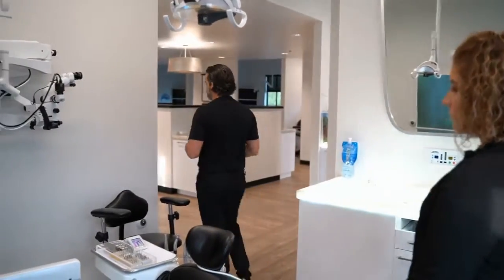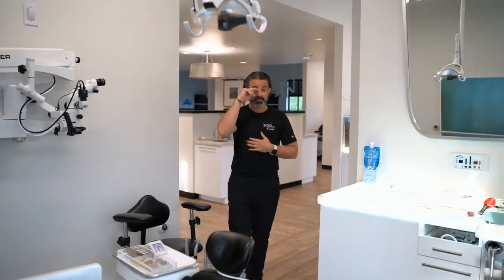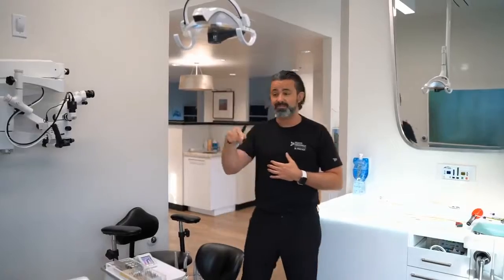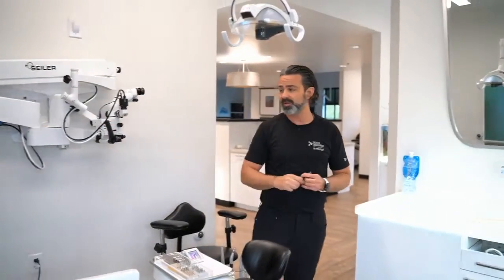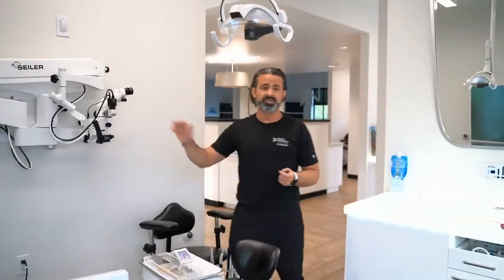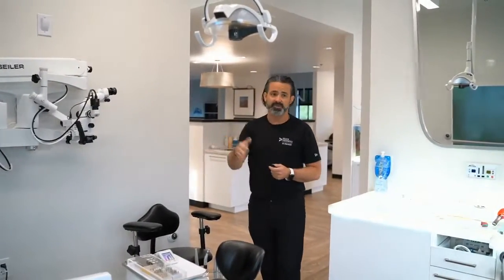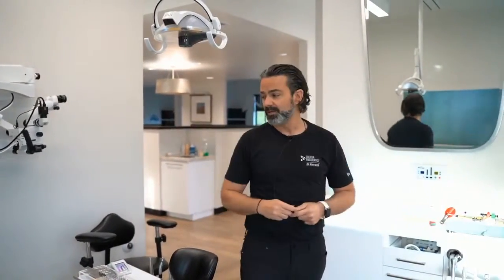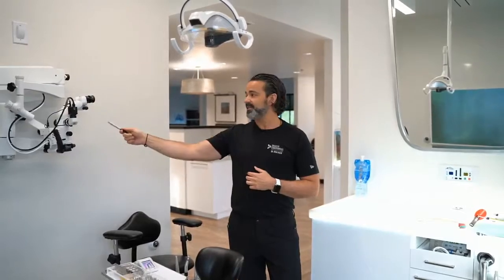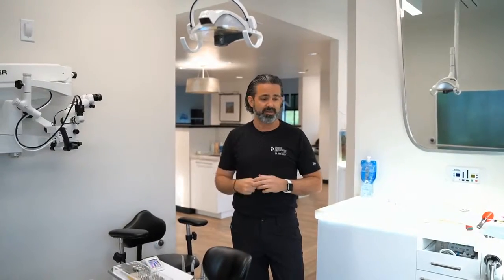I'll walk out here and come here. And inevitably, that movement in my office is why I ended up putting it here on the 3 o'clock wall, because I can always push it back, walk out, come in, and bring it back down. And that will address the issue of parfocaling in a second. Okay. So that was why my decision ended up being here on the 3 o'clock wall.